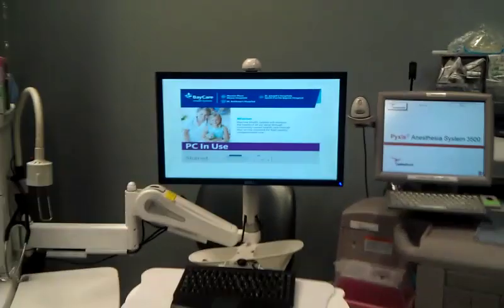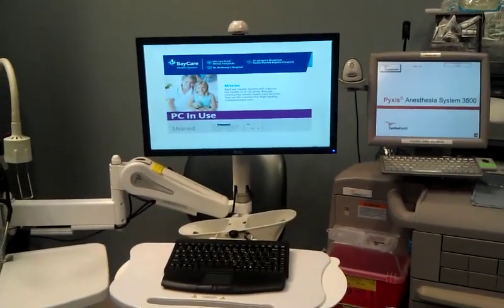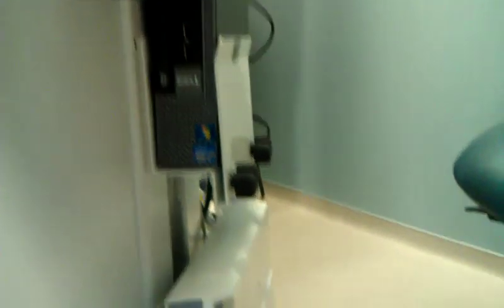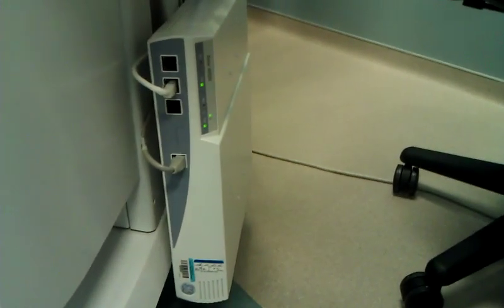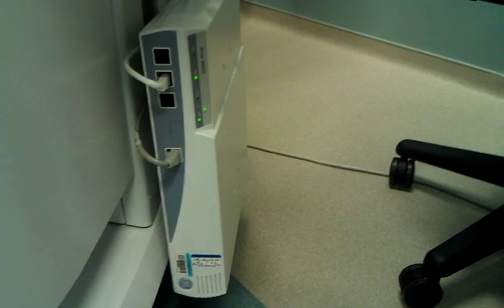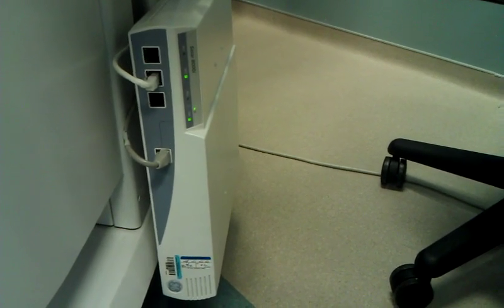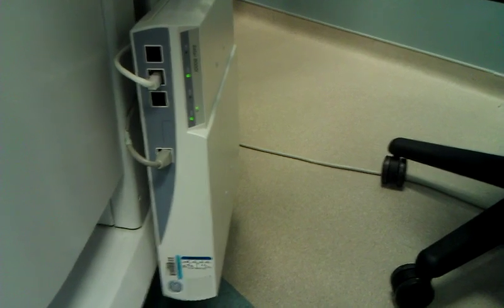This is the PC that the doctor will be using to document anesthesia. The unit for the PC is mounted on the side of the anesthesia machine. It's got a network cable that will go back to the boom that I'll show you in a little bit. Down below it here is the unit for the solar monitor, and there's also a cable going from the back of this to the boom as well. It could be a point of failure.